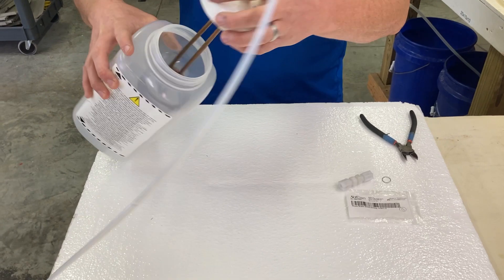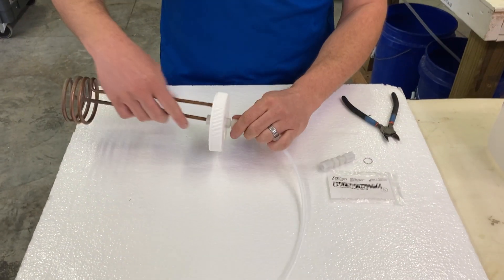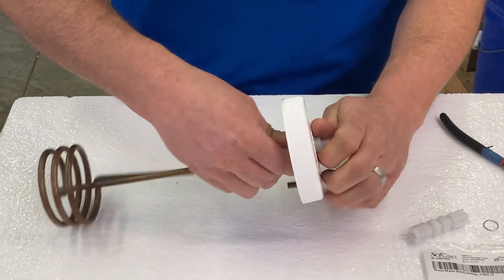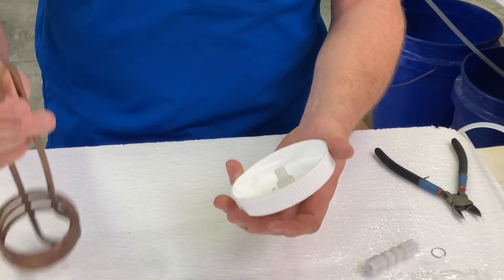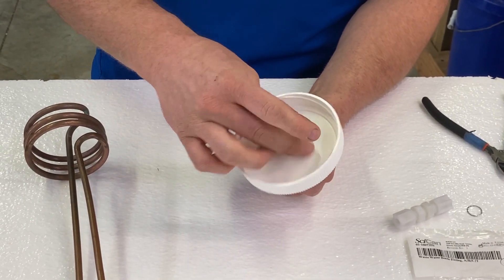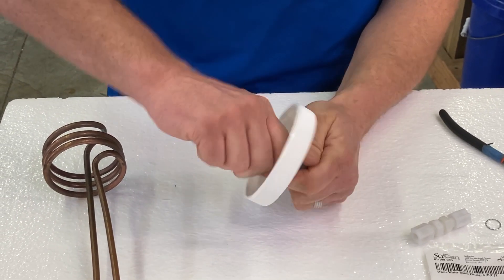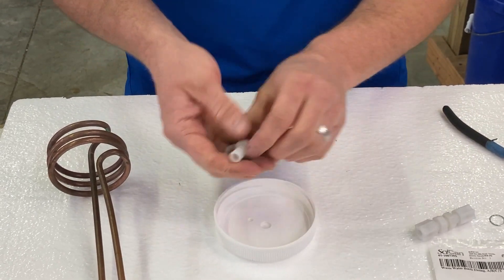First of all, we're going to take the coil and the cap away from the bottle. These are going to unscrew from the top and the bottom. So we're going to unscrew the top half and unscrew the bottom from the coil. There's a nut on either side of the cap and a metal lock washer. We will unscrew this all the way and discard your old pieces.